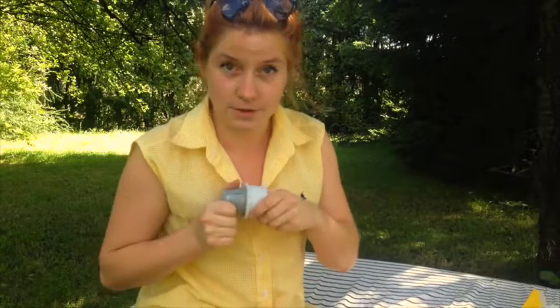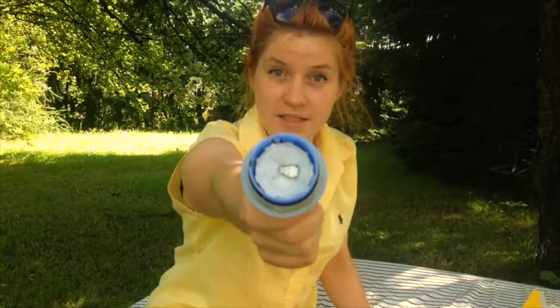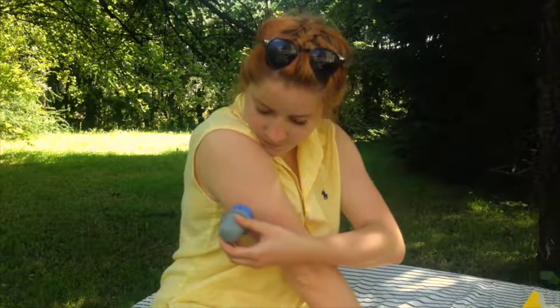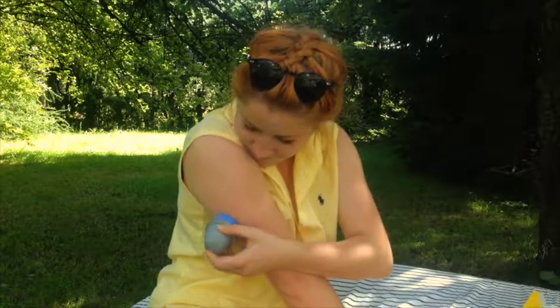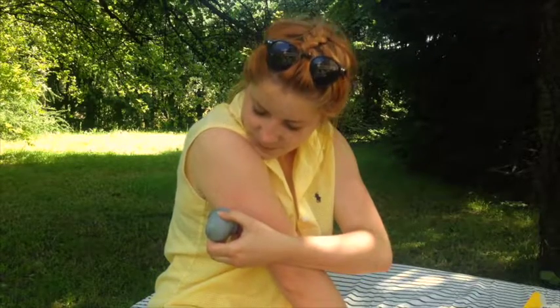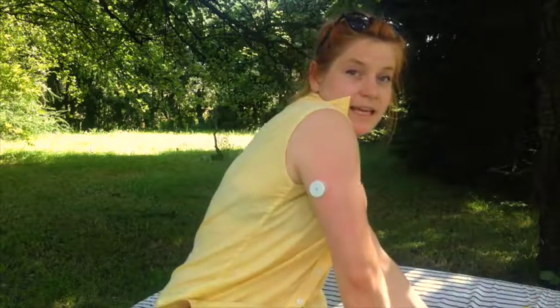Jak wyciągnę, to w tym będę miała wszystko razem. Widać nawet igłę — mam nadzieję, że to widzicie. Kolejną czynnością będzie po prostu mocne dociśnięcie. Już się boję, naprawdę się boję. Ale w ogóle nie bolało! Słyszeliście klik, a ja nie poczułam nic. Delikatnie odciągam — i jest. Trzyma się. Pięknie.